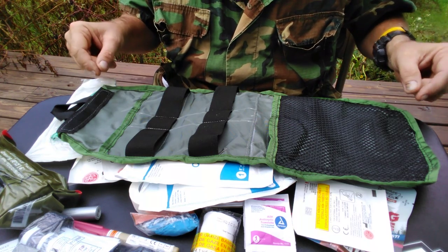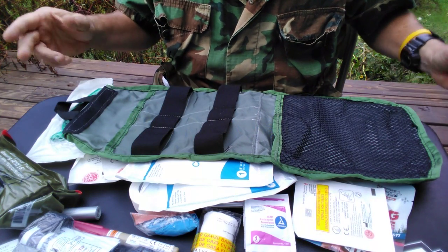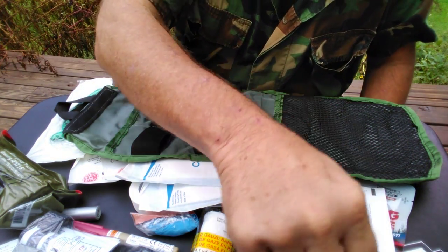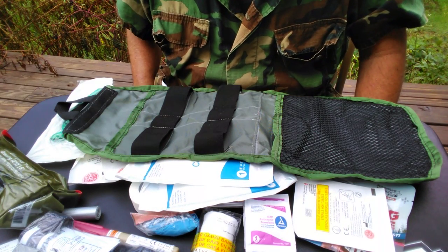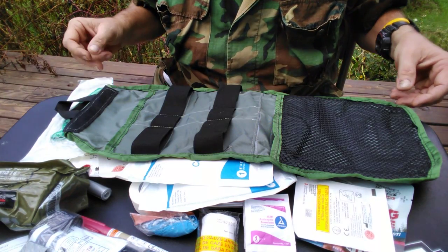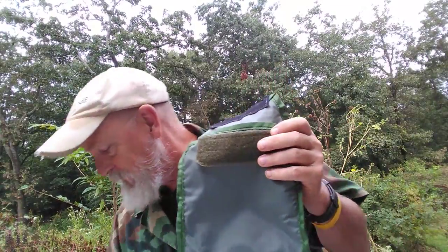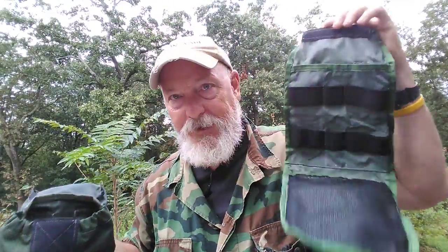Bear makes about $20 per kit — that's what he makes on it. Price these kits. Look at other kits. The contents in this kit are quality. Made in America. This isn't assembled in some slave labor factory — this is put together by Americans for anyone, but mostly for Americans. I really like this. I'm proud of this. Everything goes in here, and this fits into your exterior bag so you can just pull it out and go.